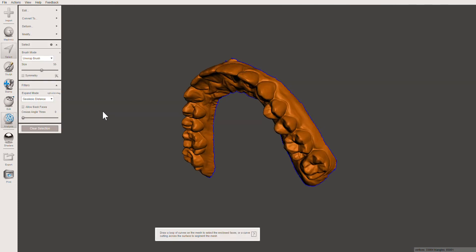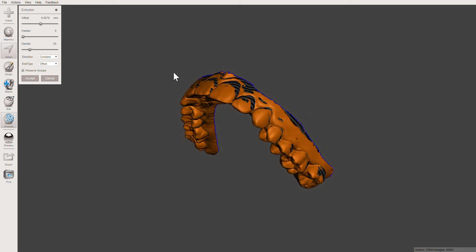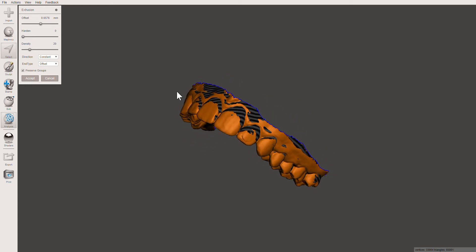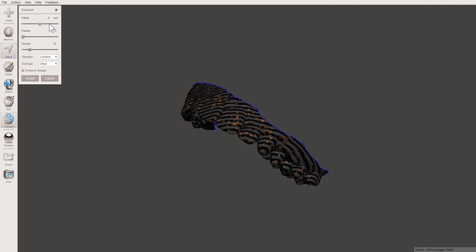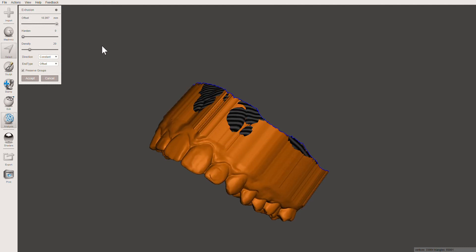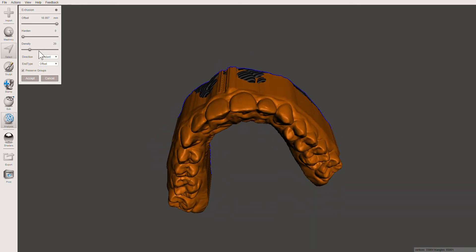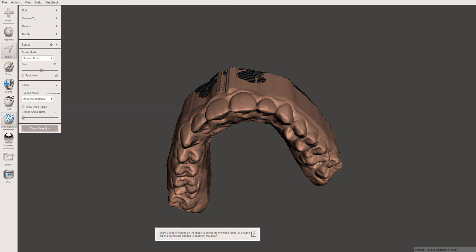I'm going to press Ctrl+A to highlight the entire model, then go into Edit and Extrude, or you can press D on your keyboard. The model will turn orange with black stripes. Go to Offset and drag it to the maximum so you can see the entire base — we're going to extrude a really nice base. I'm not going to mess with any other settings like harden, density, direction, or end type, so I'll just press Accept.